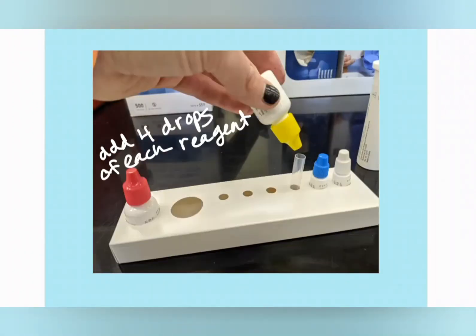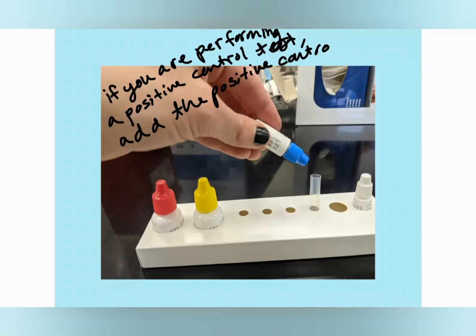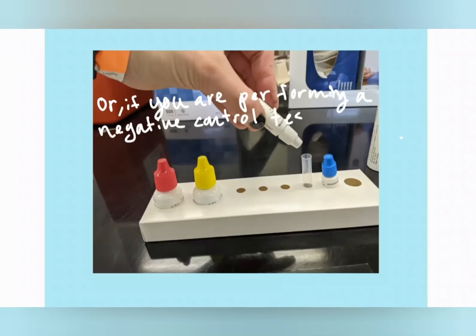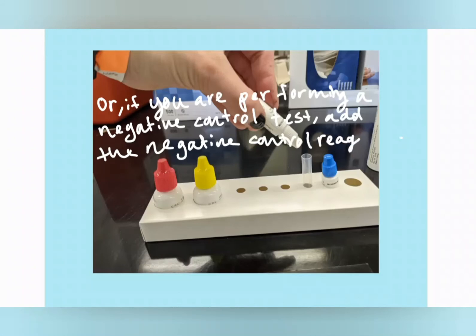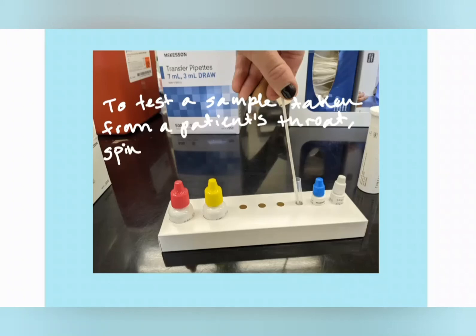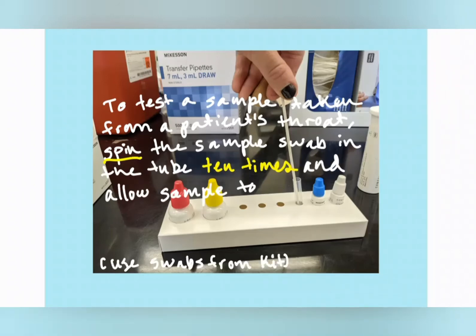Start by adding four drops of both Reagent 1 and Reagent 2 into one of the tubes that come in the kit. If you're performing a positive or a negative control, use those little solutions that come in the kit and then develop it like you would any other sample. It's really important that you actually do the procedure like you would with a sample from a patient. Now that you have your solution ready in the vial, go ahead and put that sample swab from your patient into that vial. Spin it 10 times to make sure that the sample gets into the solution, and then allow that sample to sit for one minute.